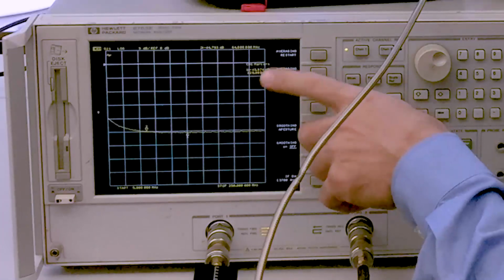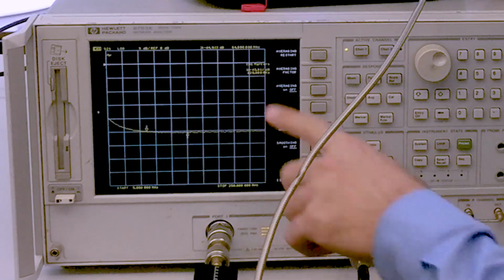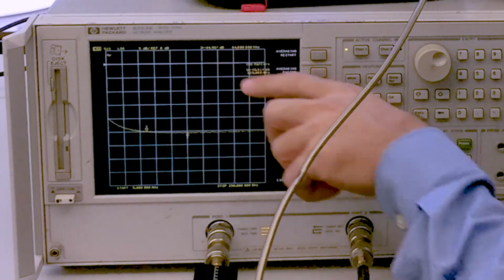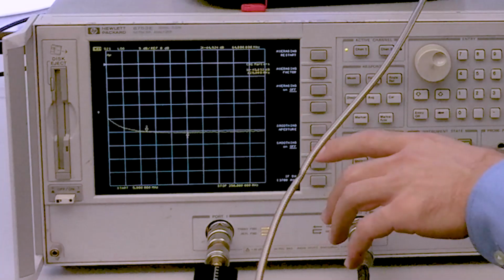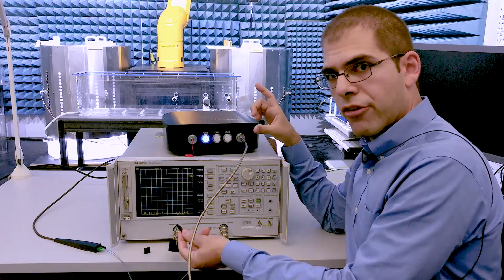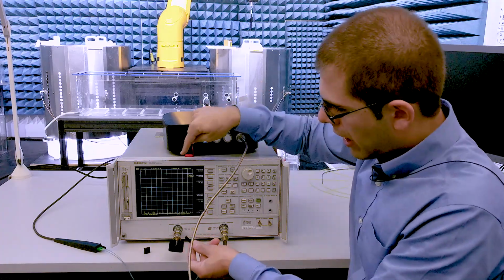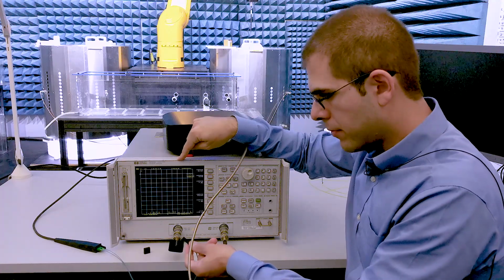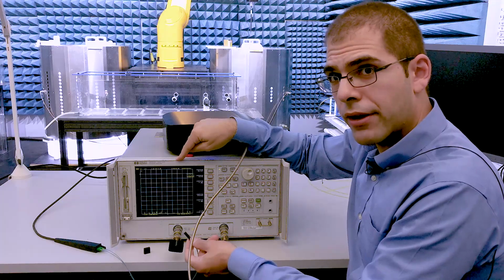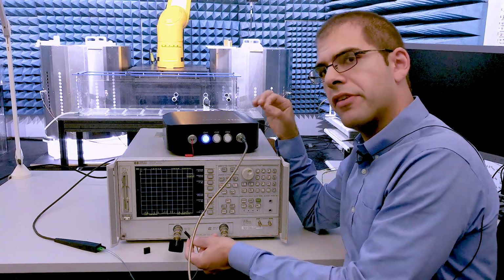I've set the VNA up to measure the S21 at 64 and 128 megahertz. It has a very flat response, and I'm looking at minus 45 dB. What that means is that when I measure something with this, I take the number that I'm measuring, which is the input power, I subtract that number, so subtract 45, I subtract 10, which is a conversion factor, and what I'm left with is the resultant dBV.